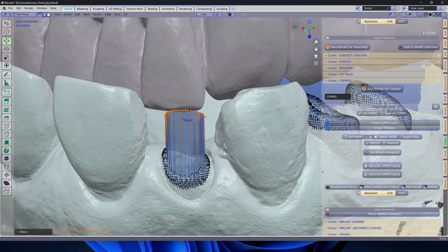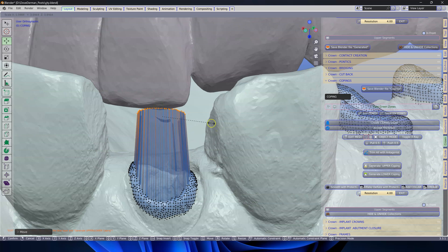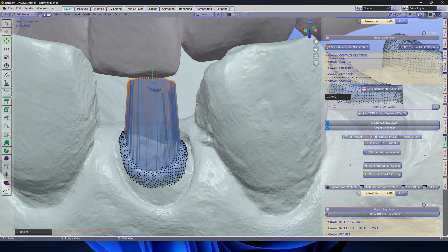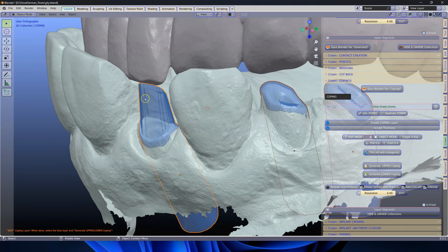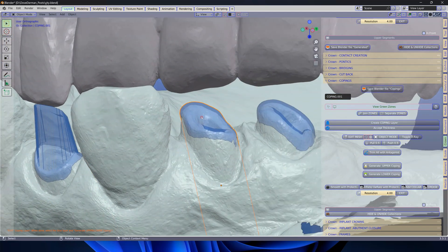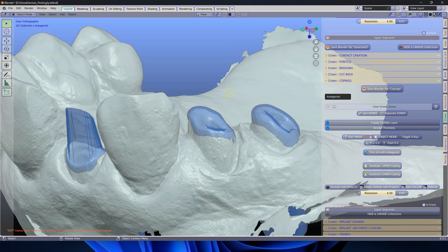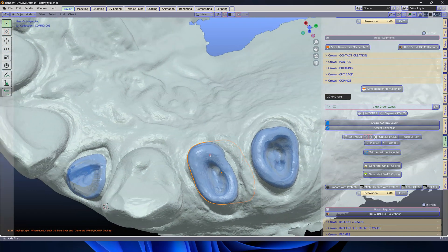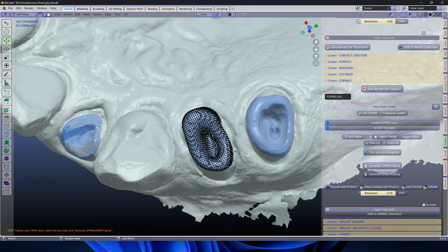This is sort of okay. I'm going to go S to scale and make it a little bit less parallel — we don't need it that parallel. So this is my basic shape. I'm going to go to this one and hide this one — H to hide it. I'm going to do the same over here, Tab, C key.